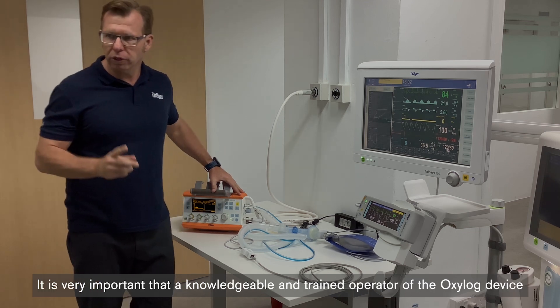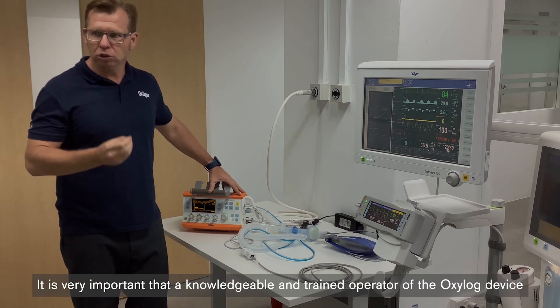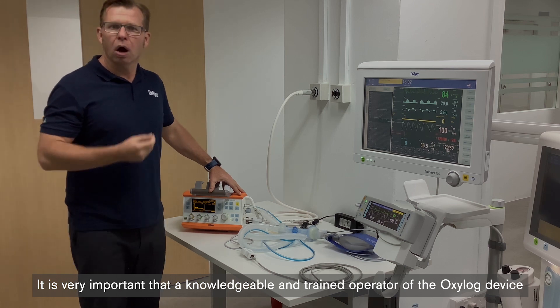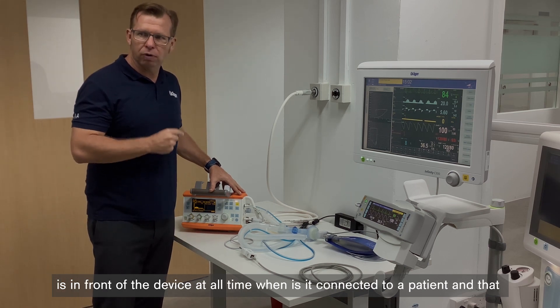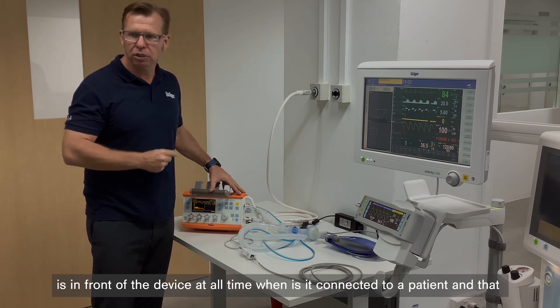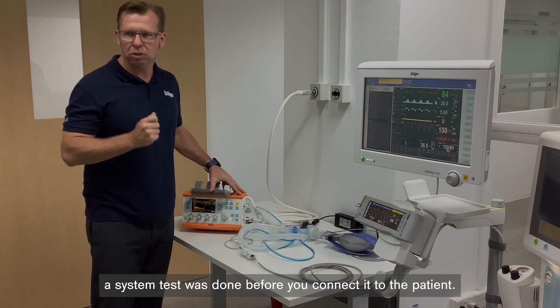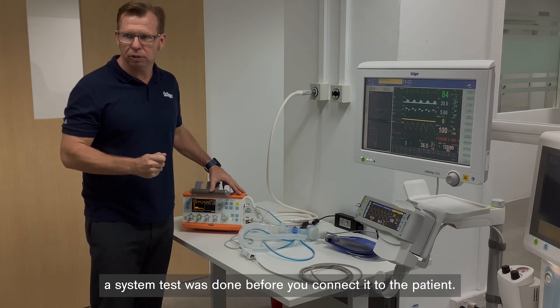It's very important that a knowledgeable and trained operator of the Oxilog device is in front of the device at all times that it's connected to a patient, and that the system test was done before you connect to the patient.